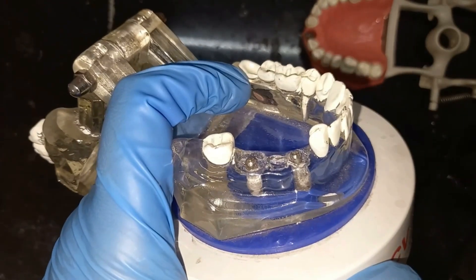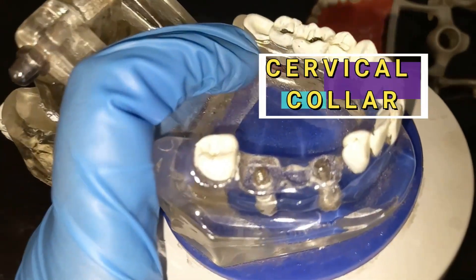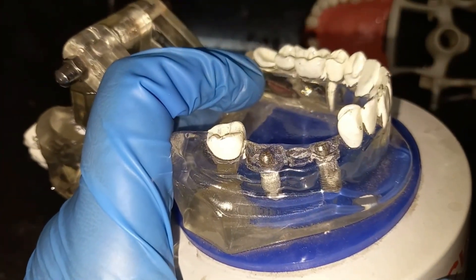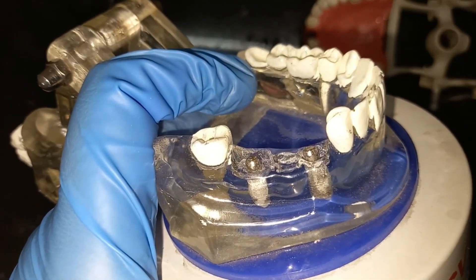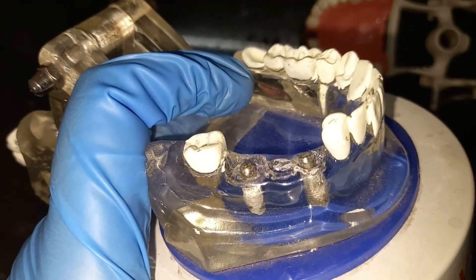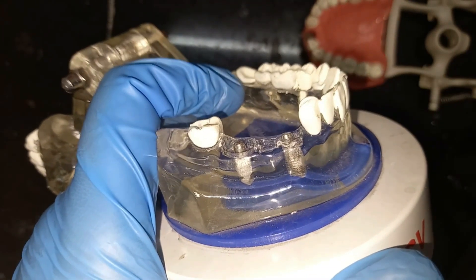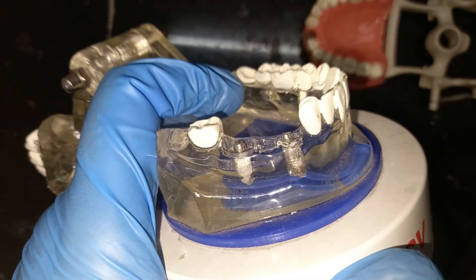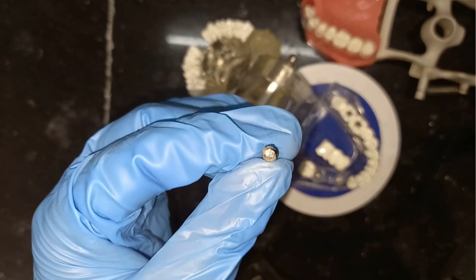As you can see in this image, the part of the implant exposed in the oral cavity is smooth, which means it is a cervical collar. If this part were rough, it would be called the crest module. So to recap: rough exposed surface — crest module; smooth exposed surface — cervical collar.